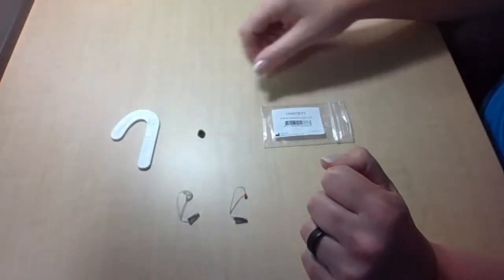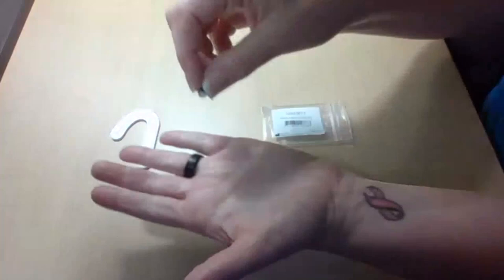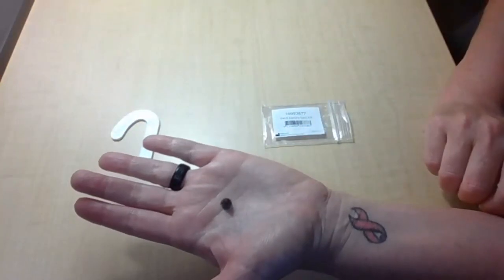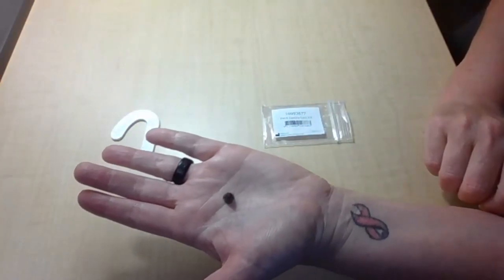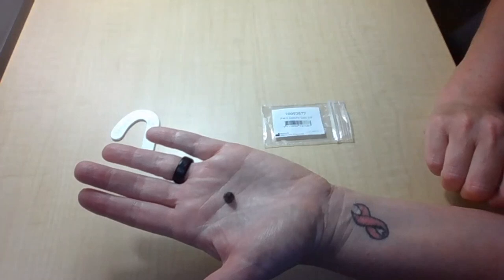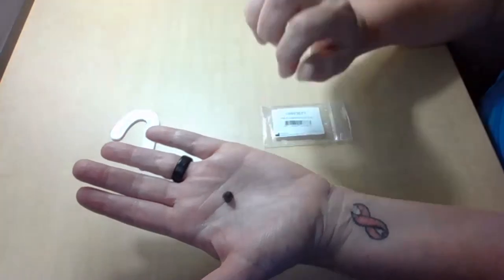With EarWare 3.0, you also have standard domes and sleeves, so that means you have one kit to maintain for both thin tubes and receivers for your domes and sleeves.